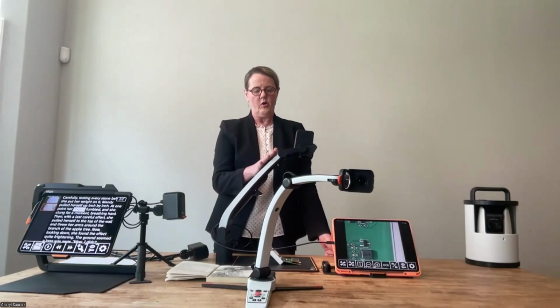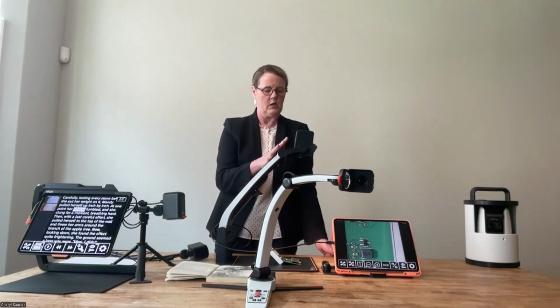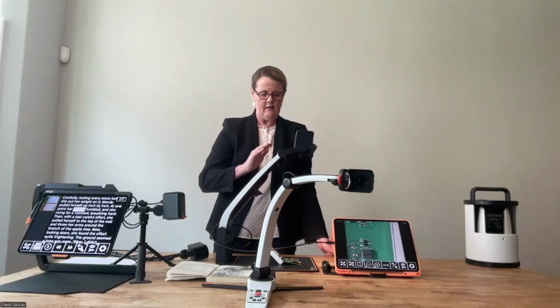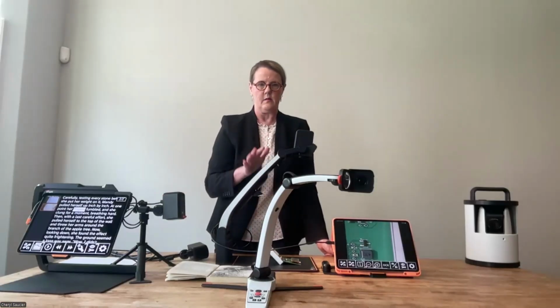So if you think about environments for your vocational rehabilitation cases, for that veteran who might want to tinker, do woodworking or soldering or building things with tools, in an education environment where you might have a shop class where you're doing this kind of fine detailed work, this is an interesting camera to add to the family of the Magnilink Mini, the Magnilink S, the Magnilink Pro.